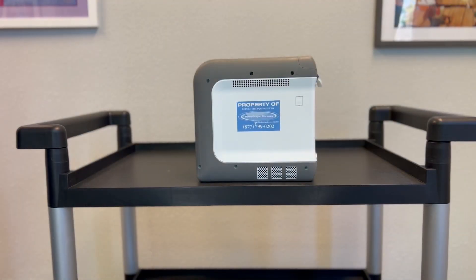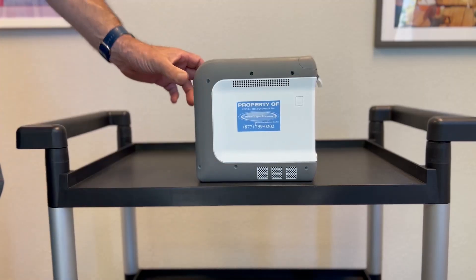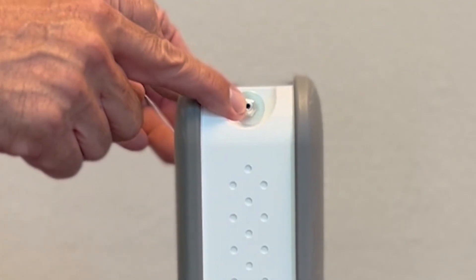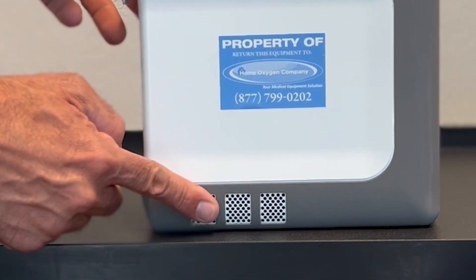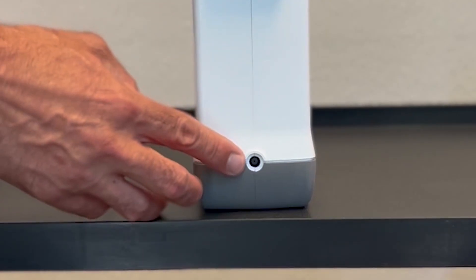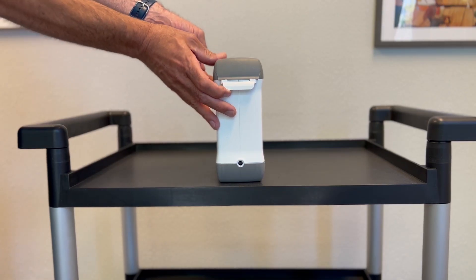Reviewing the exterior of the Drive DeVilbiss iGo 2, you have ventilation ports for airflow, your oxygen cannula port, more ventilation ports, your power supply port to plug in and charge your unit, and your battery flap.